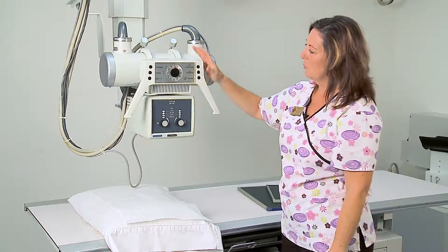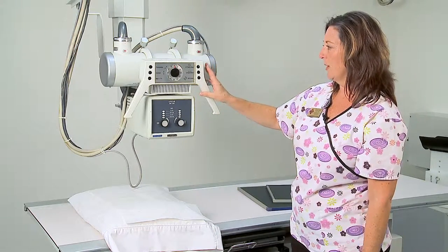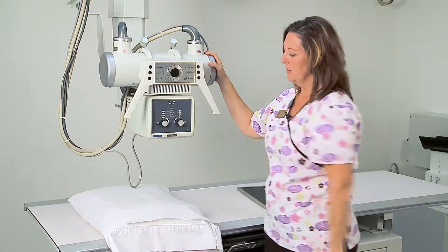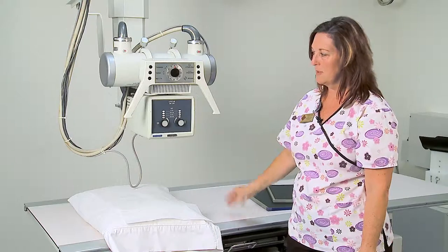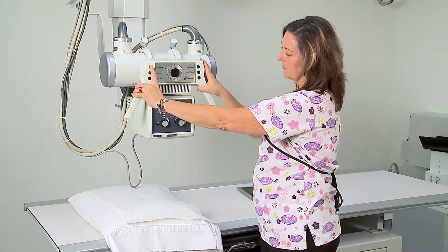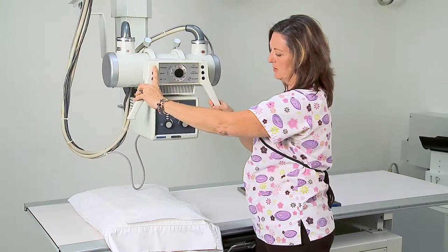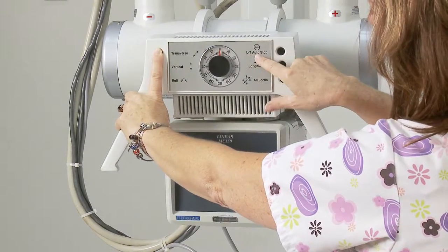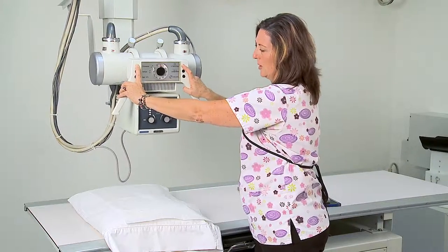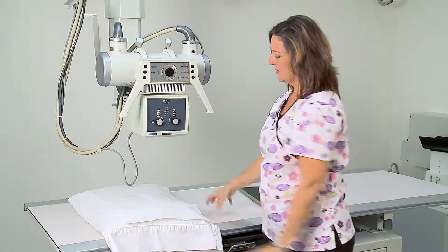It's very important when getting ready to make an exposure that we do something critical in order to make an accurate exposure. We are going to put the tube located to the center of the table — a term we call detent. If you press the transverse button and go back and forth across the table, then press the LT auto stop at the same time, you will detent the tube to the center of the table.